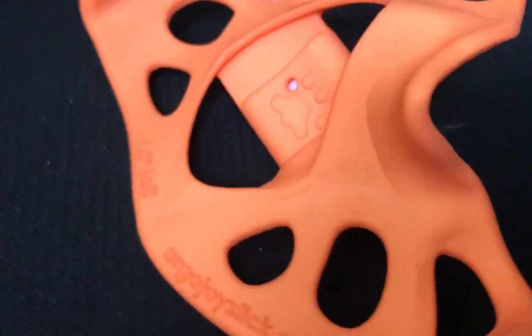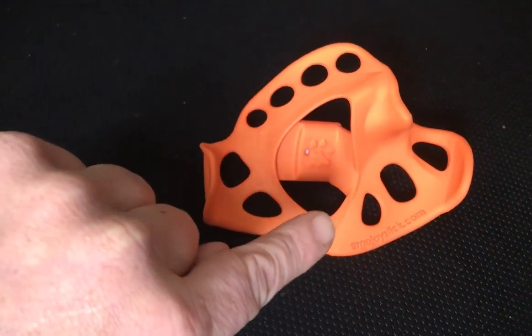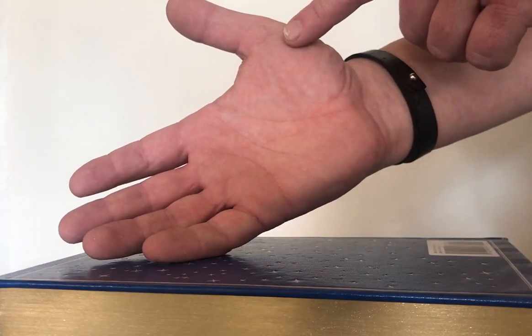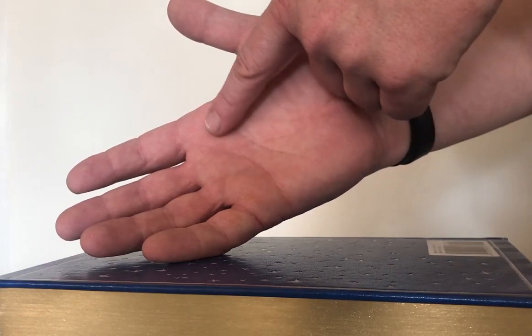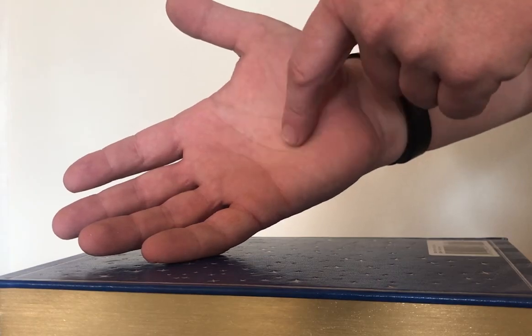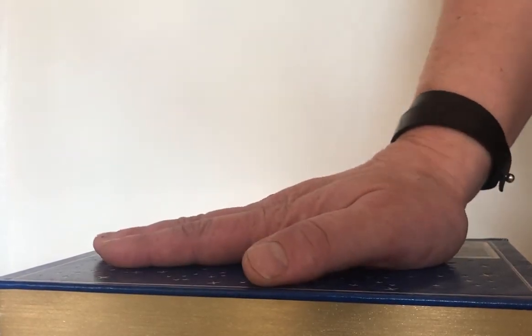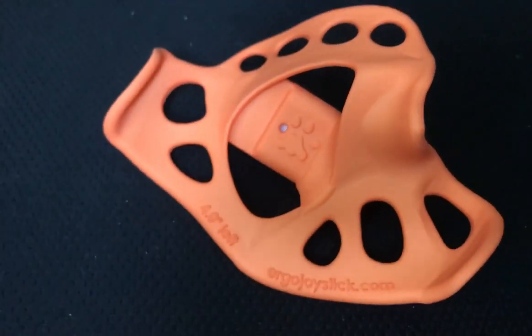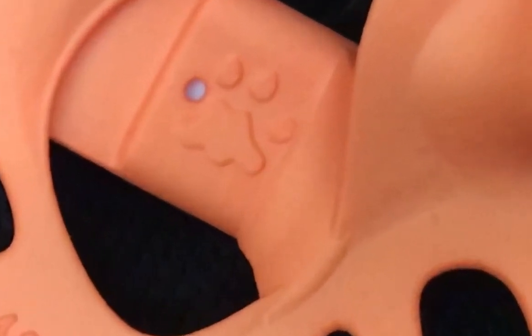When you look at the surface which holds your hand, you will notice there is a large hole in the center. Now look at your palm. Notice how the heel and across the bottom of the knuckles are well padded. In the middle, tendons sit close beneath the skin. The padded areas are designed to distribute force, like when you are doing a push-up. The hole in the center of the joystick is to ensure only the areas of the palm meant to bear weight bear weight.